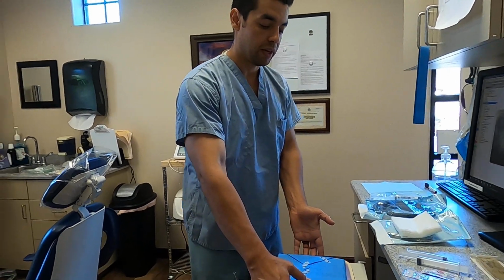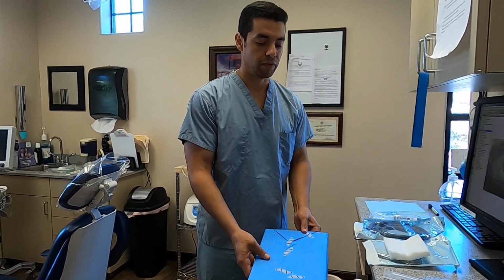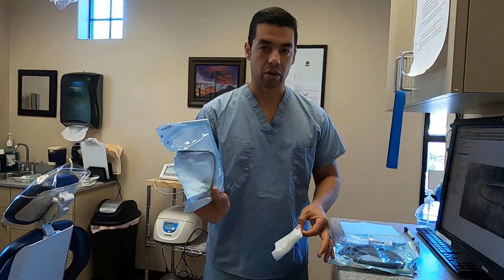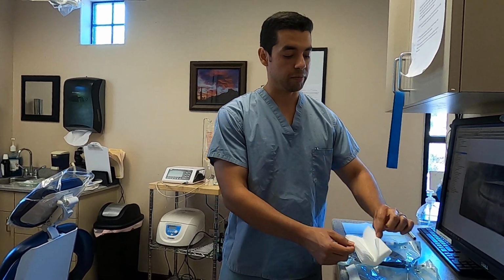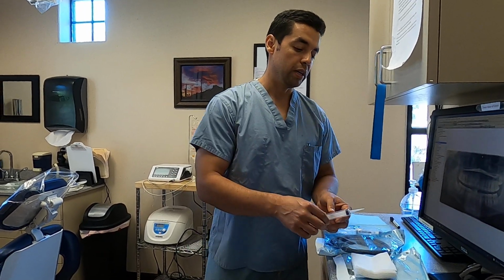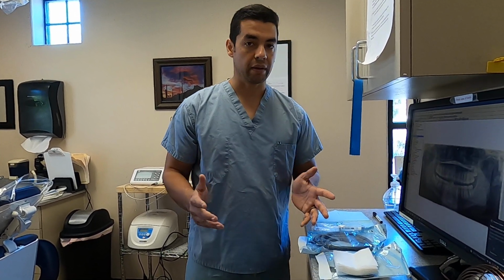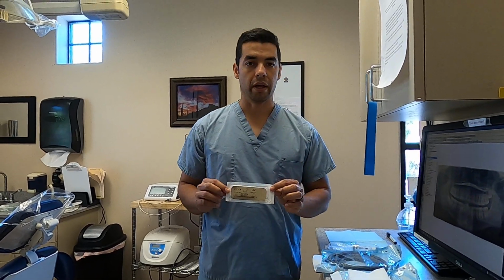We have our basic surgical kit, which contains most of the basic instruments that we need for an extraction. Outside of that kit, we should also have a sweetheart retractor. And we should have 4x4s set up and ready to go for the case as well. That's every surgical case. We should also have irrigation on hand for every surgical case. So we need to have at least 1 or 2 syringes, depending on how many teeth we're doing. If we're doing multiple, it requires more. We should also have a 15 blade and suture.